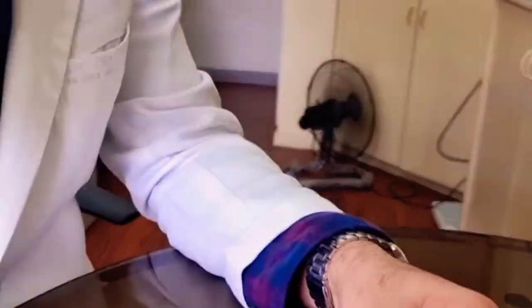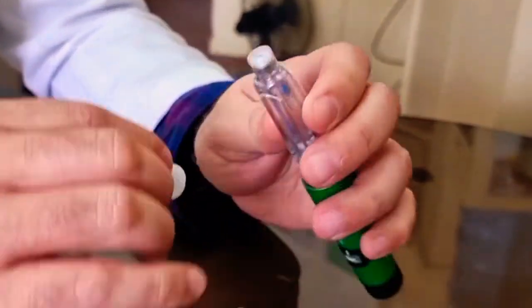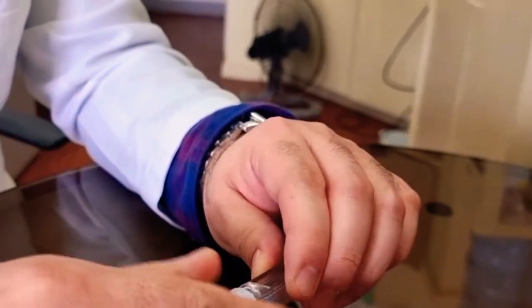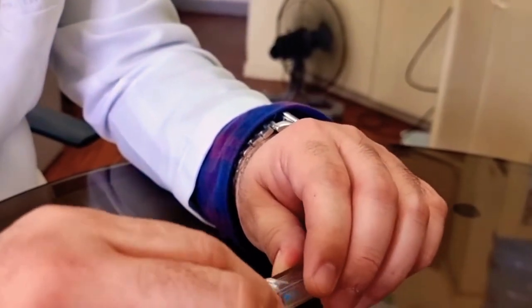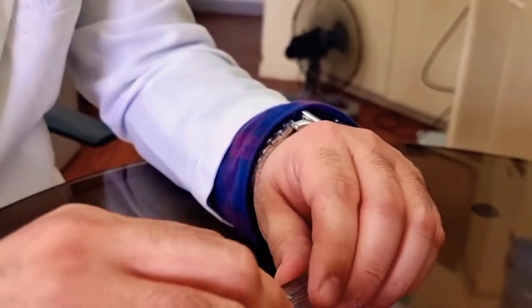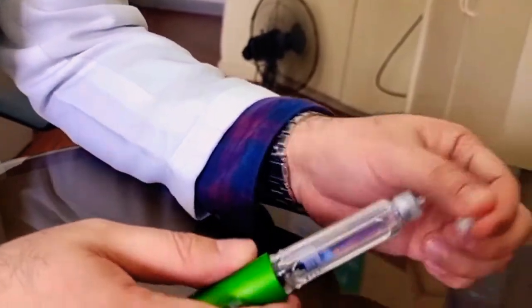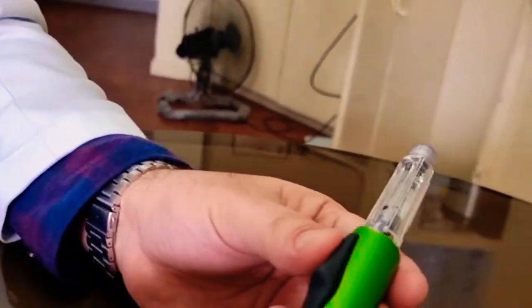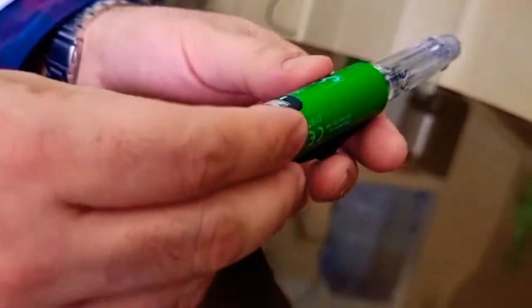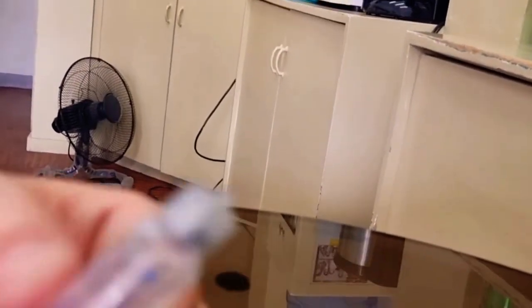And how do you put the needle? This one you're already familiar with. Just make sure that one was clean first. Same as the old pens. It doesn't have to be super firm in. You slowly pull the inner covering, pull off the cover.